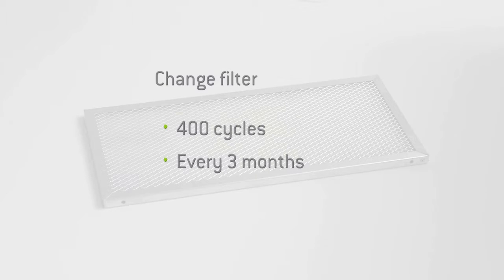By replacing the filter, you ensure your steriliser has a component that remains effective at filtering the air which passes through it. If the dust filter is heavily clogged with dust, it must be replaced.